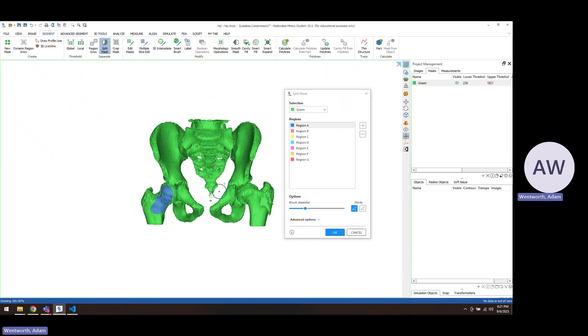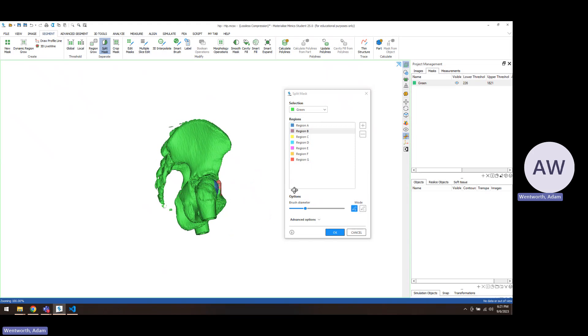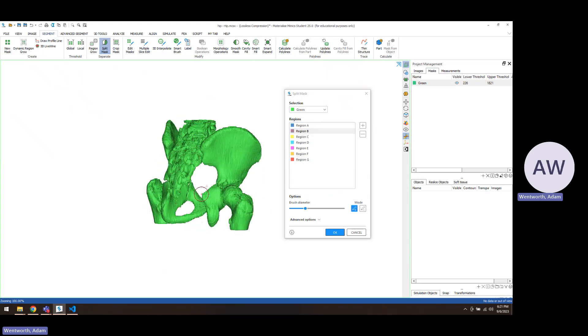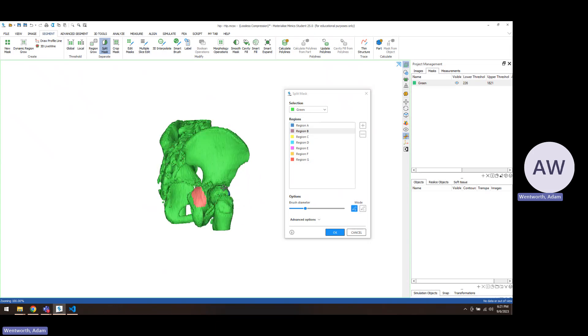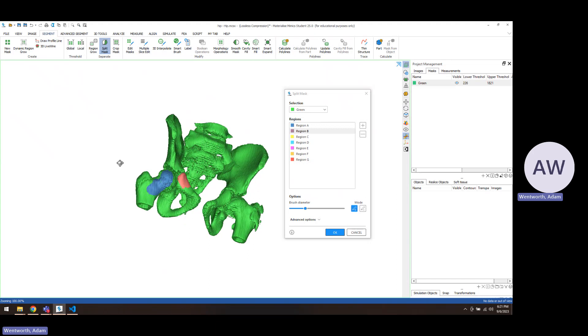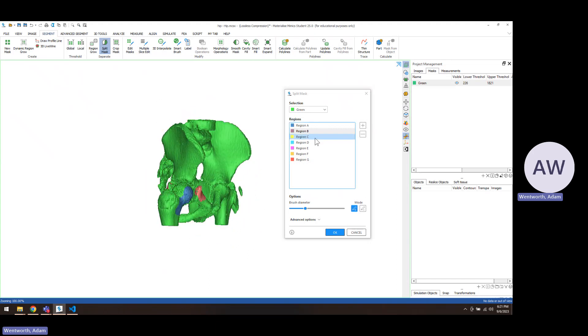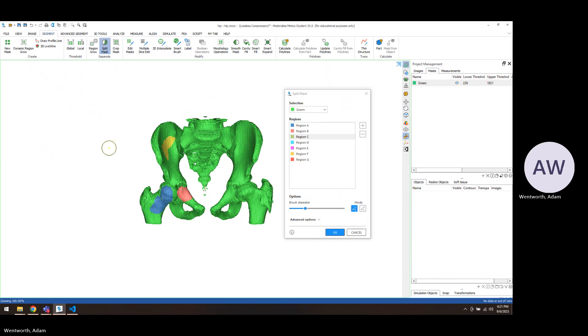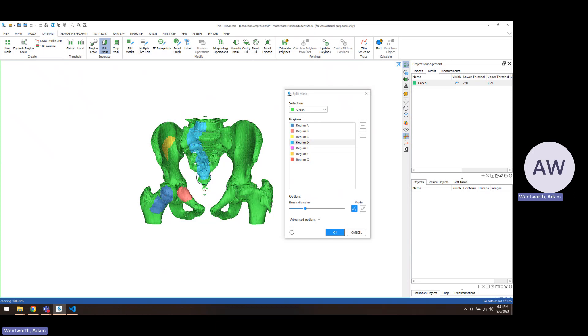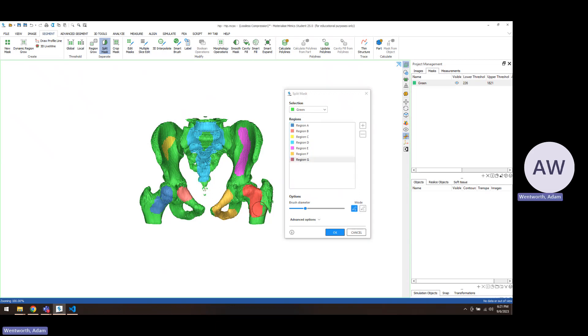So we'll just paint this on 3D. And what we're kind of looking to do is give the computer an idea of here's where the one starts and the other one stops. So if there's any pieces that are almost touching, you kind of want to give the computer a heads up of like, here's where it stops and here's where the other one starts. But these aren't really well connected anyway, so I'm not super worried about that. So let's put the sacrum and that last lumbar vertebrae all together. And you can obviously take as much time as you want with this, but I'm just showing you very quickly.